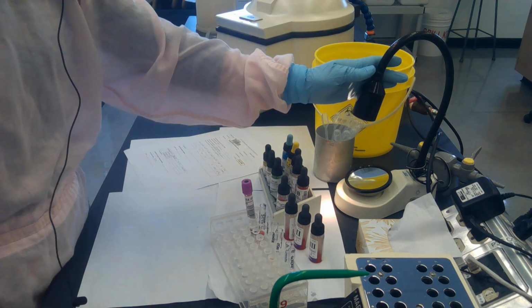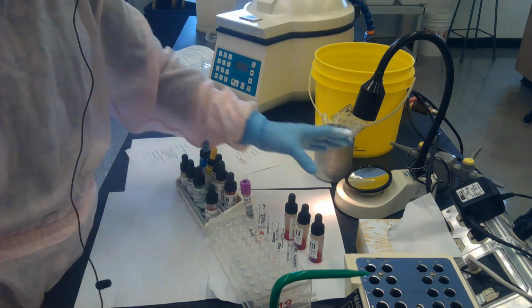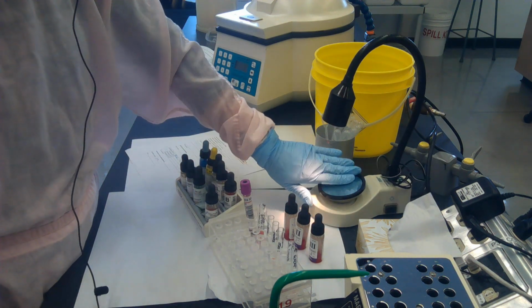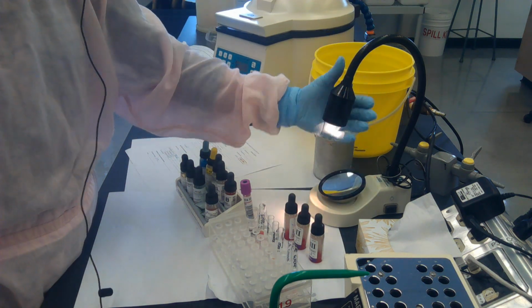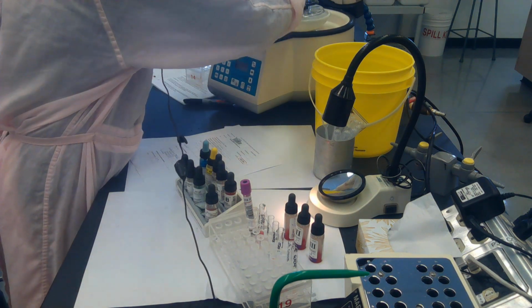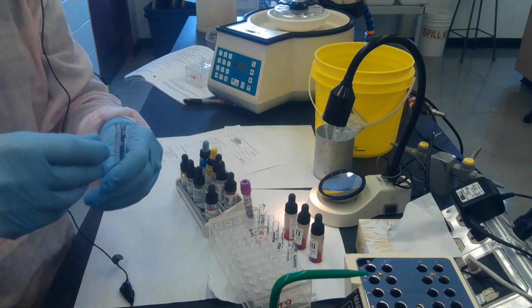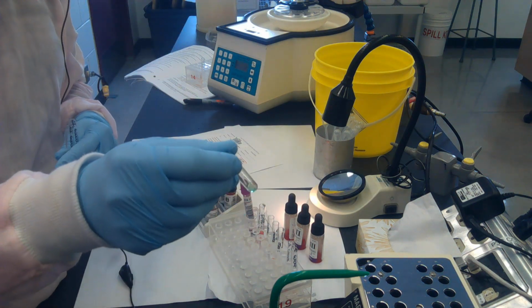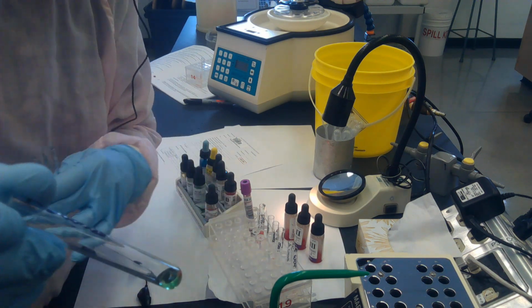So I've got my agglutination mirror ready, because when I look at agglutination reactions, I like to use this concave mirror, which magnifies the contents of the tube, and there's a really nice light source coming down, which allows us to really visualize the reactions well. So depending on how experienced you are, you may waggle one tube at a time. So I take a look at my tube.